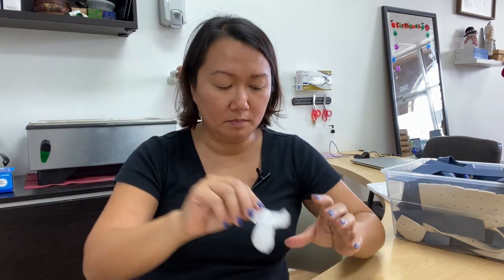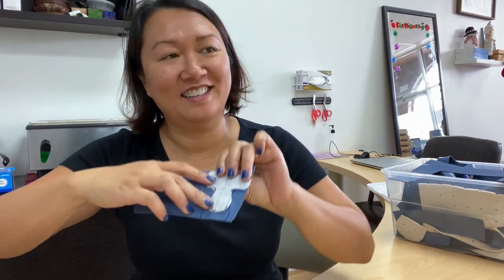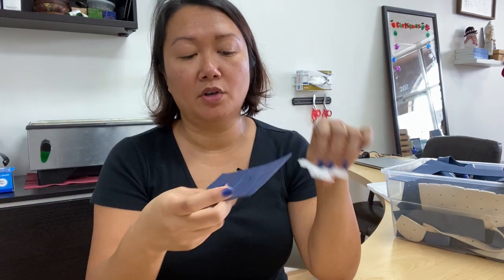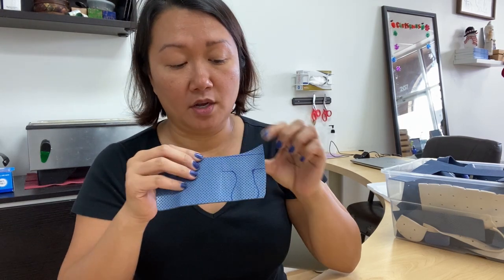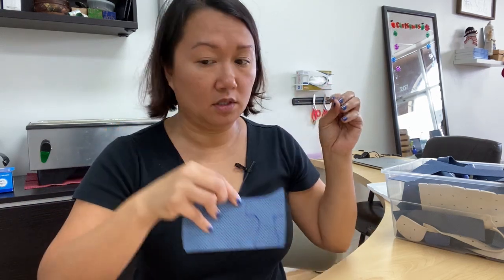Either way you do it, it's good. If you're not sure of how long, you can always cut it wide because you can stretch it. You can cut this T part wide so you can stretch it out a little bit. If it's thick on top, you can stretch it and it'll narrow itself out.